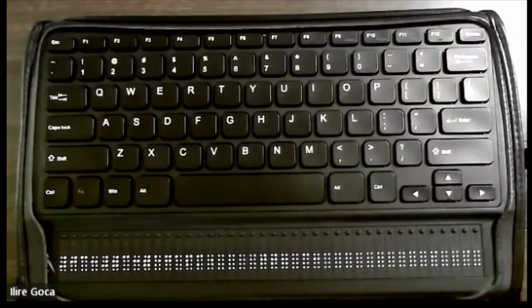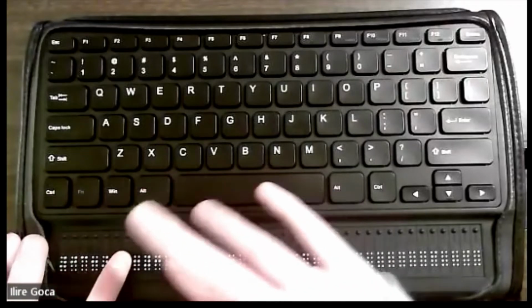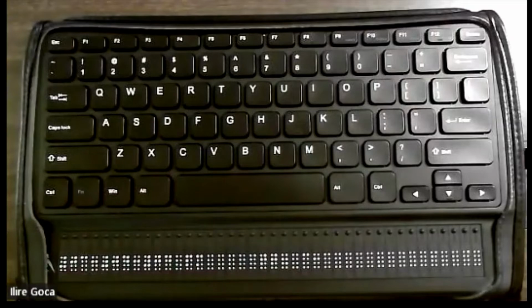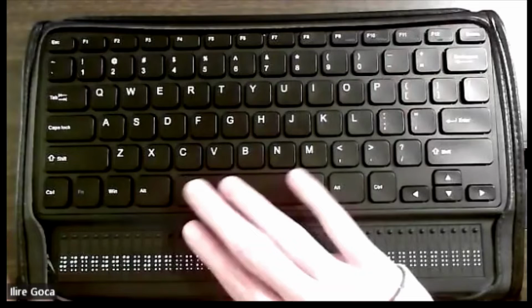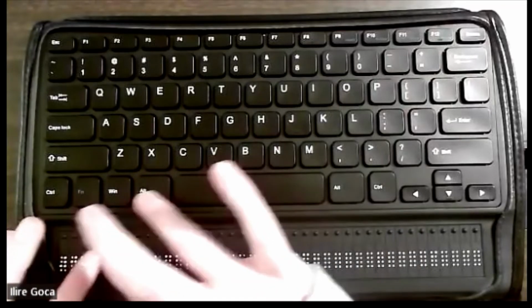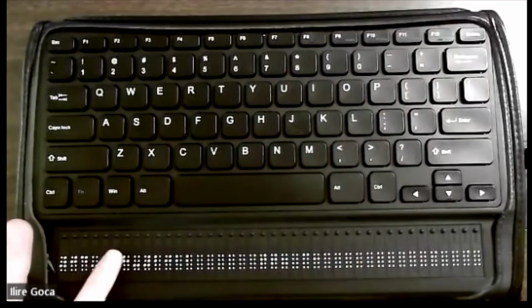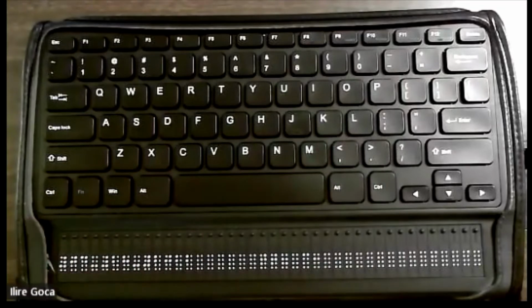Once in the date and time application, the current time will be displayed first. So I can see that it's 3:04 p.m. When you press the space bar, you will move to the next item, which is the current date. So I'm going to press space, and the current date is 4-28-2022, which is April 28th, 2022.